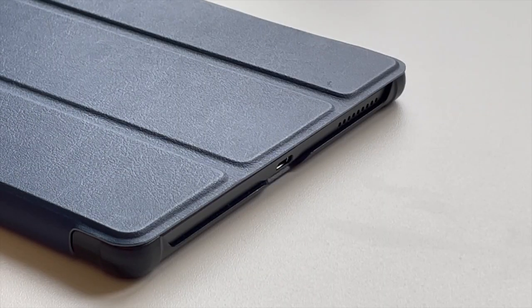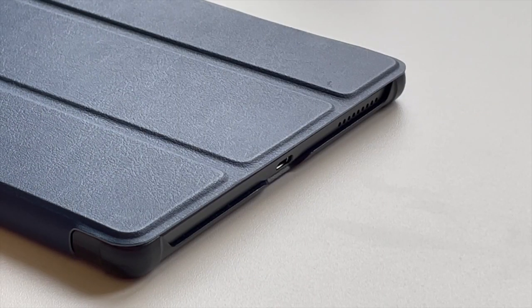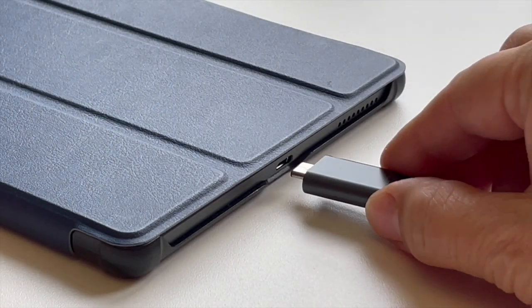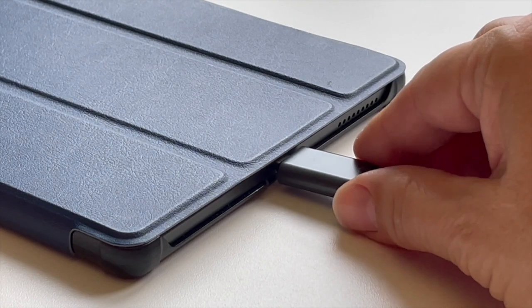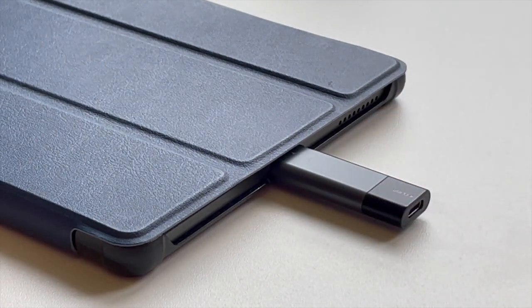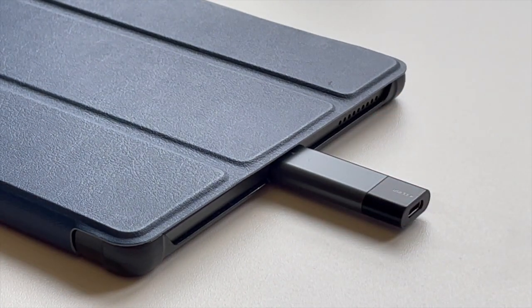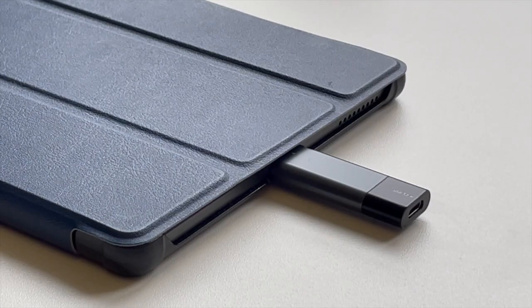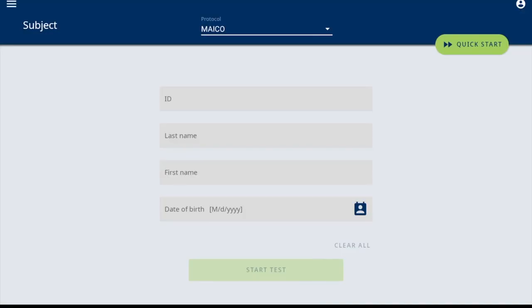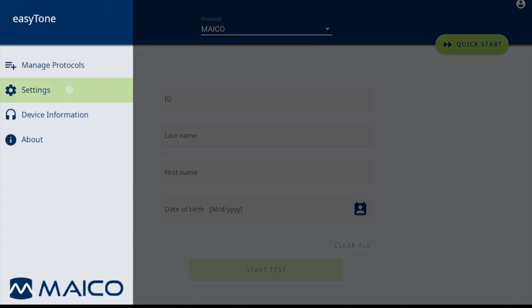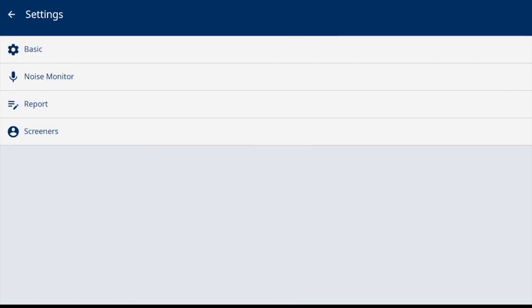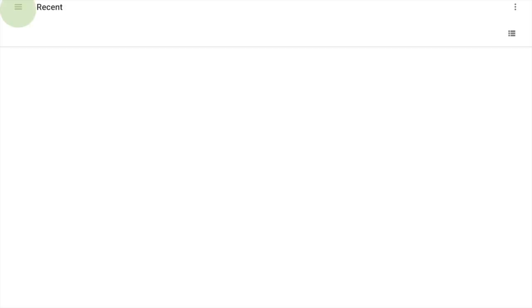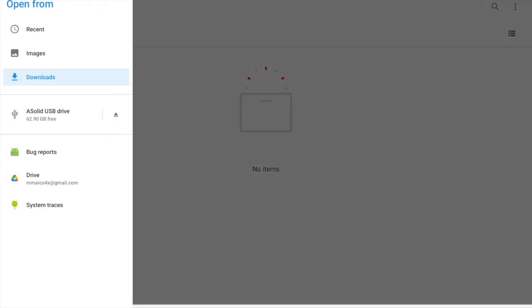Option two is to use a USB-C flash drive to save the logo file from the PC. Connect the USB-C flash drive to the Android tablet, go to the report settings and select the add image icon. Select the hamburger menu from this screen. The connected USB-C flash drive is listed for your selection and importing of the file.